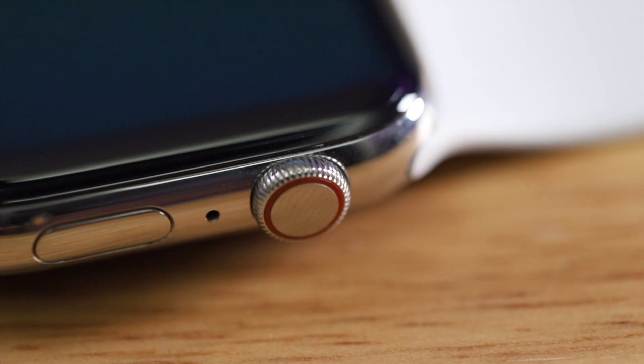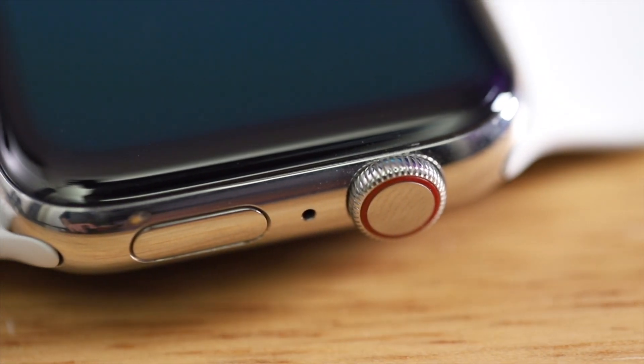To wrap up, I think this is a clear picture of where Apple is trying to position the Apple Watch in the market, and where they're trying to dominate the health-based wearable technology device area. I think that's really smart, and I also think they're doing an incredible job of it. This is the first direct-to-consumer device with ECG functionality — I'm sure we'll see more coming from other companies and devices, but I think it's a really cool way to look ahead and see where things are going.